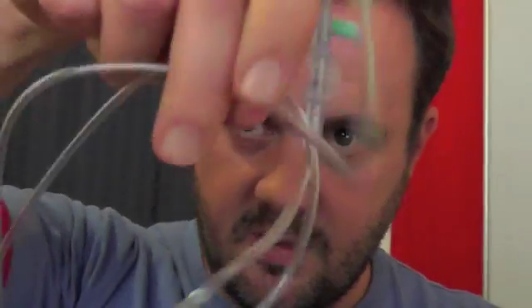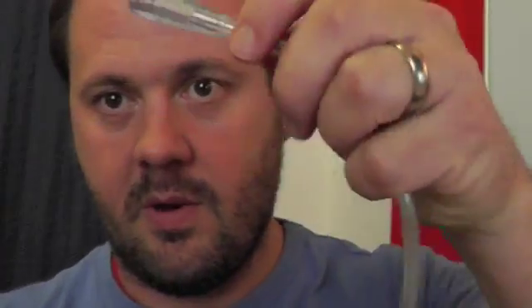So the next thing you're going to be asking me is, well, how do I connect nasal prong oxygen, which is on this crazy tubing that goes all the way around to a connector like this, which is designed to jam onto the end of your oxygen tap in the emergency department, to a bag of IV fluid? Well, luckily, I've got a giving set here, which you can see has the chamber and things that you would normally hook up your bag of IV fluid to, and it has this end on it. So how do you connect this to this? Well, there's a simple way I've figured out how to do that.